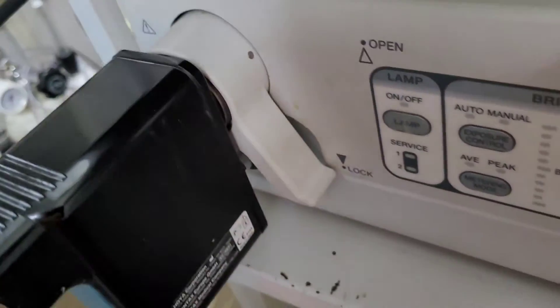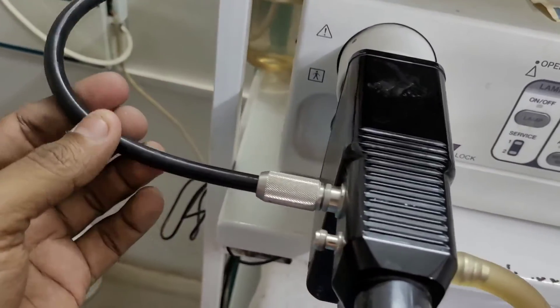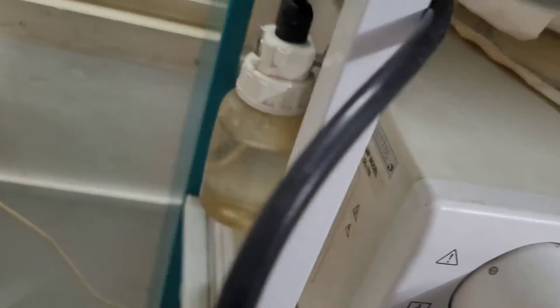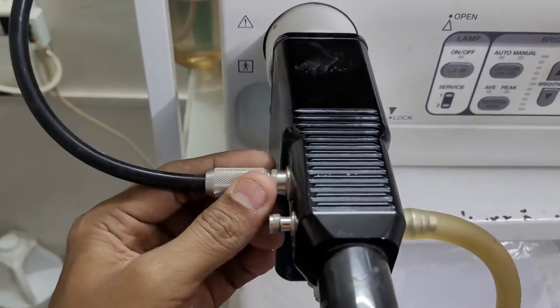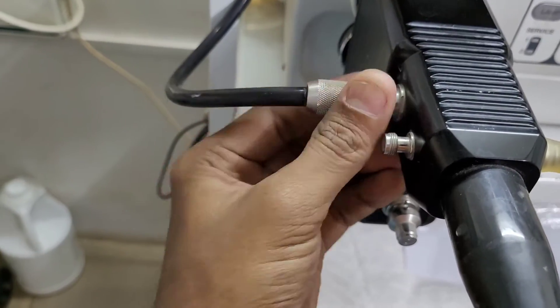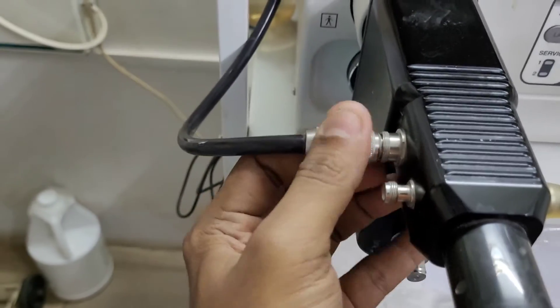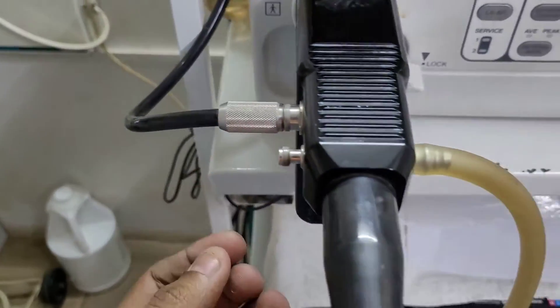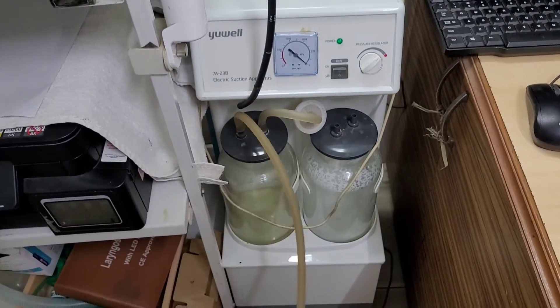This is the irrigation bottle which contains water. The irrigation water is used to clean the camera lens using a water jet nozzle. There is also a suction machine which is used to suck things out.